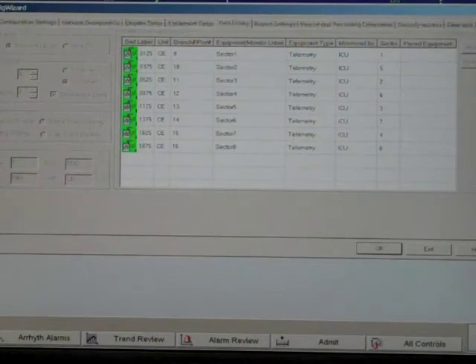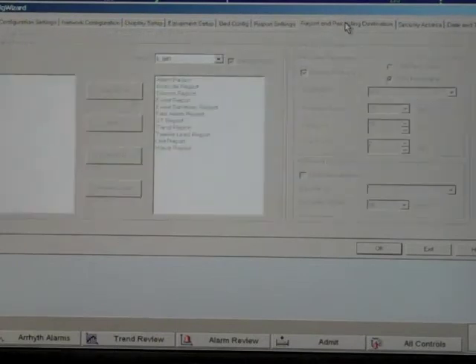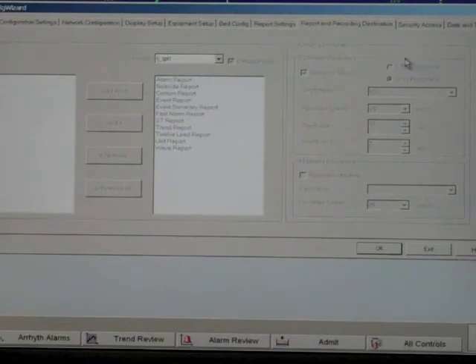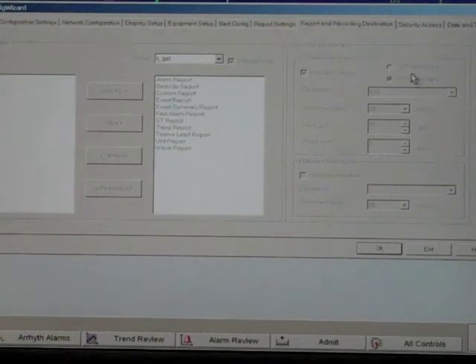Next, click on the report and recording destination tab. On the right-hand side, verify that the unit is set for the recorder type you are using. For your older style recorders, use SDNs, and for your newer standalone printers, use the USB type.